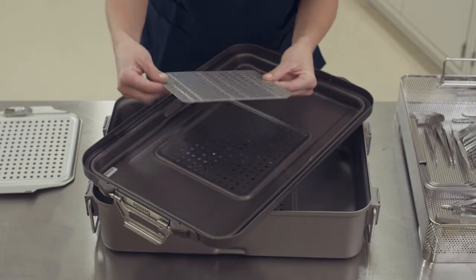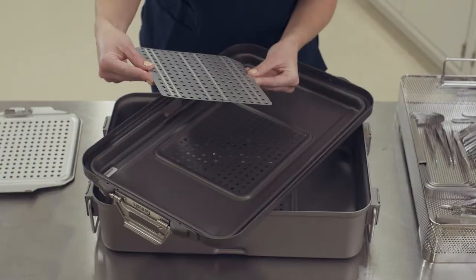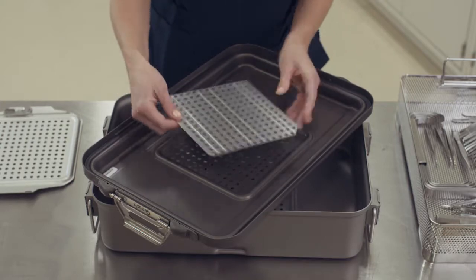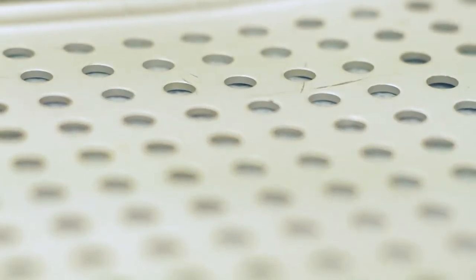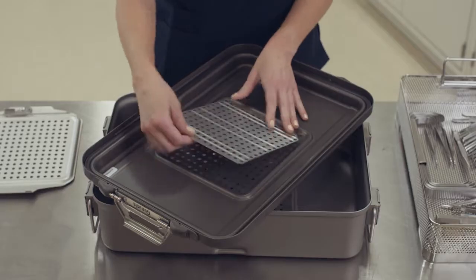An optional protective plate is available for use with pre-vacuum steam sterilization only. The use of the optional protective plate helps prevent direct contact of the filter material from external objects.